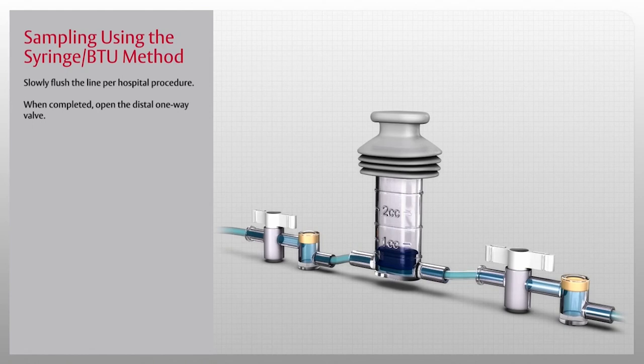Note, the approximate volume required to flush the line is 1 to 1.5 cc's.